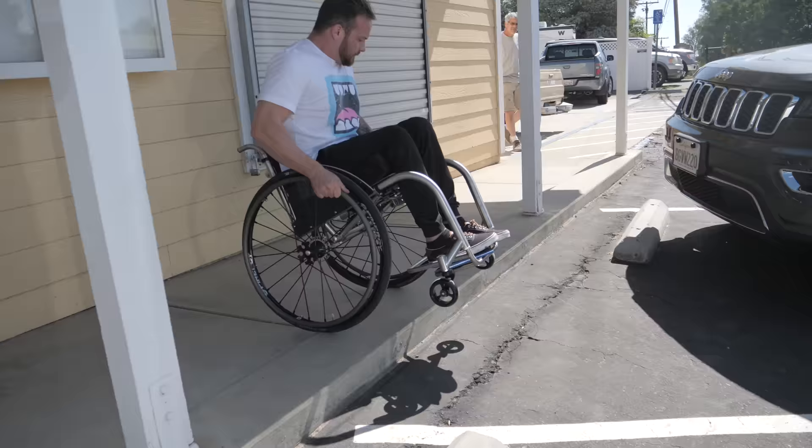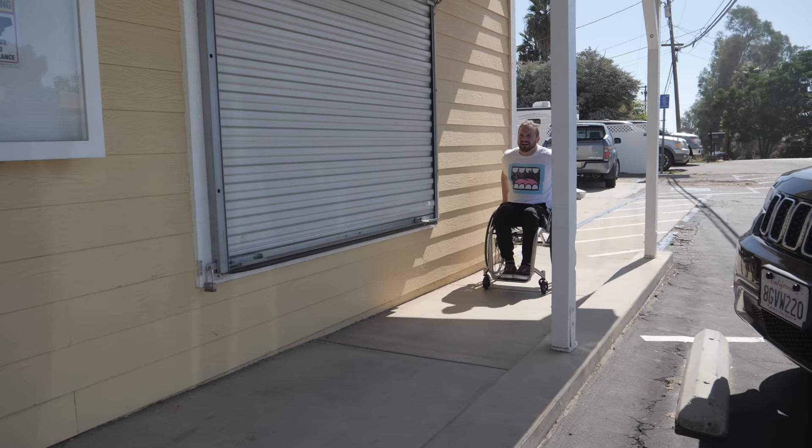So if you're jumping over curb cuts like the guy here who uses a clip-on electric scooter as a primary form of transportation, the shock makes a lot more sense. I have to think about my activities of daily living and whether it really qualifies for a Monoshock system beyond just how cool it looks. I can't imagine a world where the added value of everyday use surpasses the added detractions of everyday use for my lifestyle. I'm going to go with a rigid instead of the suspension.